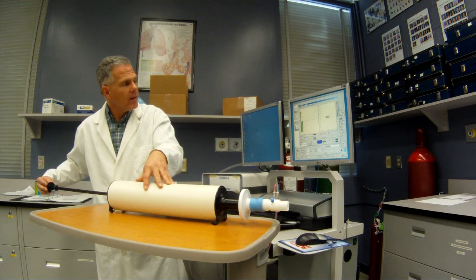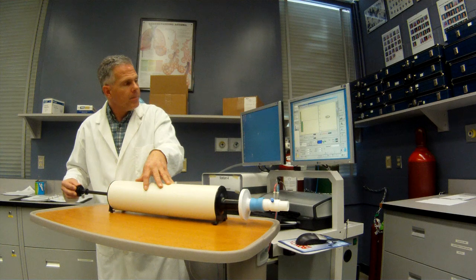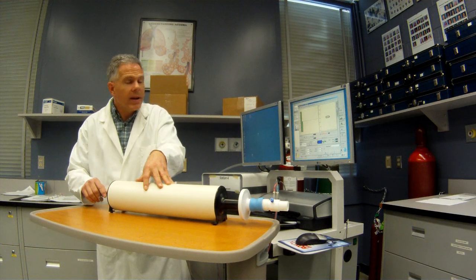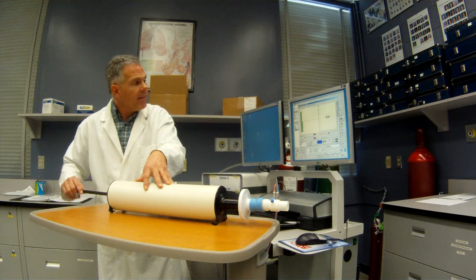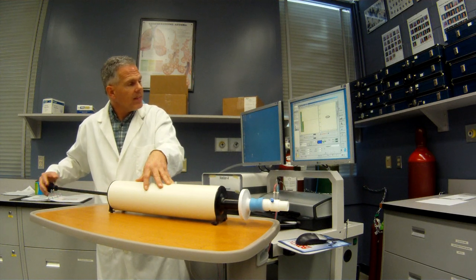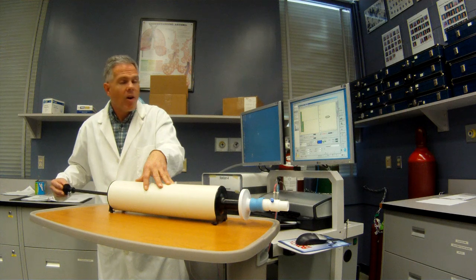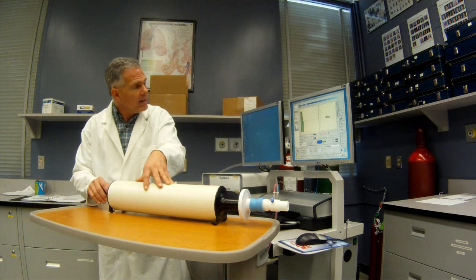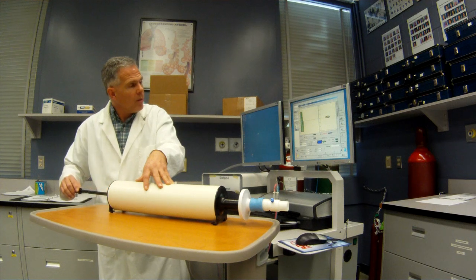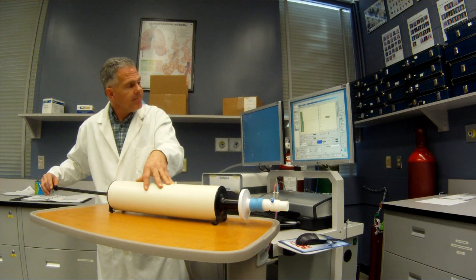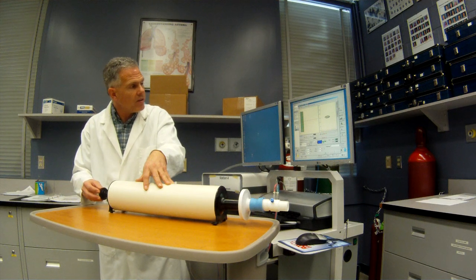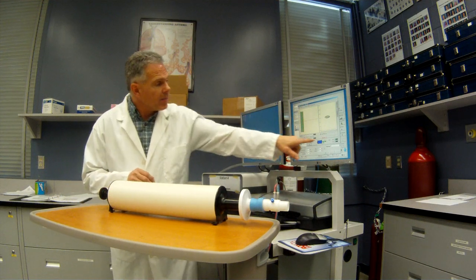Practice there, it helps out. Nice, easy slopes. So what we're doing right now is we're calibrating this for very low flow rates. And, of course, that's the most challenging part for a pneumotac to be calibrated at is low flow rates. So I'm going to have to just do one more at the low flow rate. And then we'll be able to do our high flows.